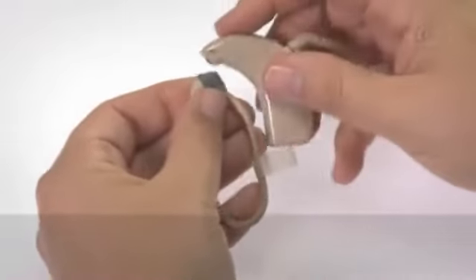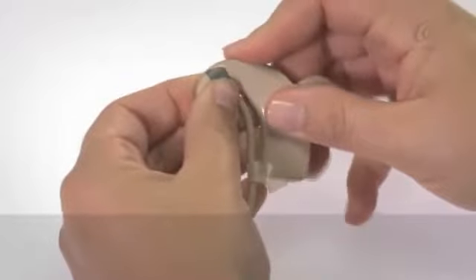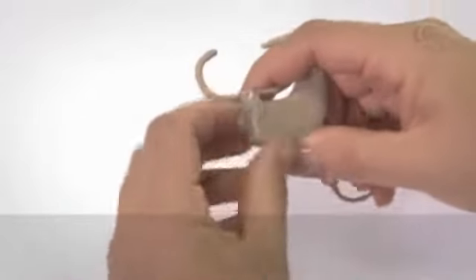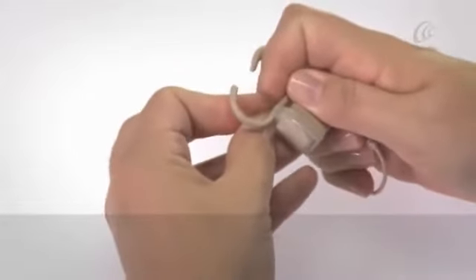Click the SnugFit into place on the processor and push the SnugFit band securely onto the battery module.